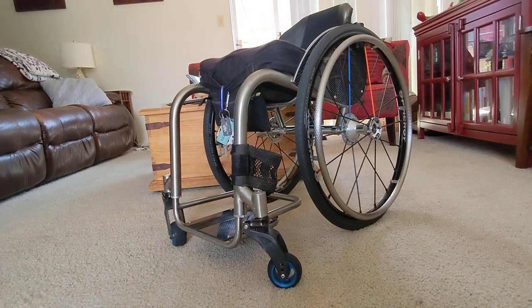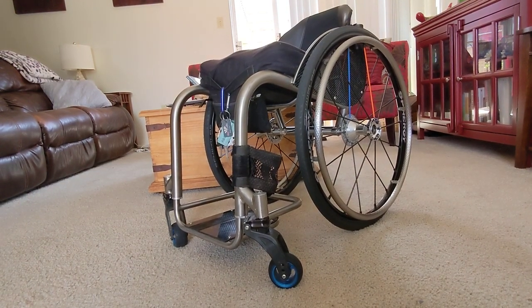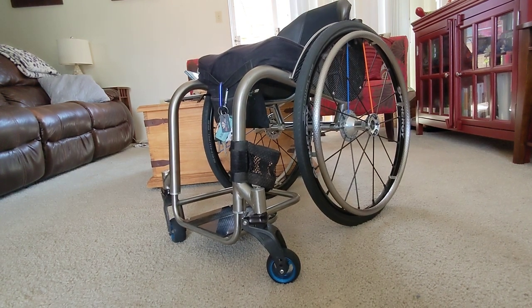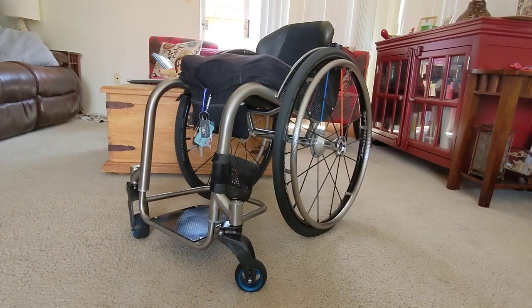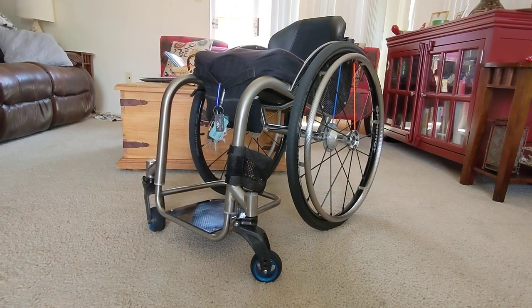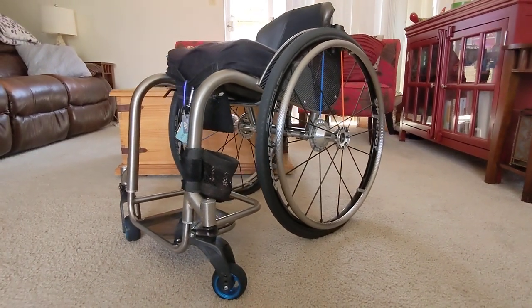I've known Steve Holub for quite a few years and I've always been super impressed by his work. This is the first time I've had anything built by him for myself, other than his Deslox brake system I've had on my other chairs. The frame is a full titanium frame, all hand TIG-welded by Eric, who is fantastic — a super cool dude and absolutely amazing as a fabricator.